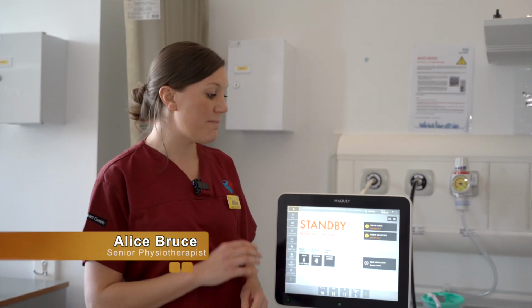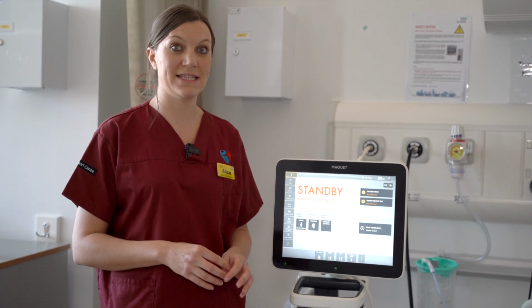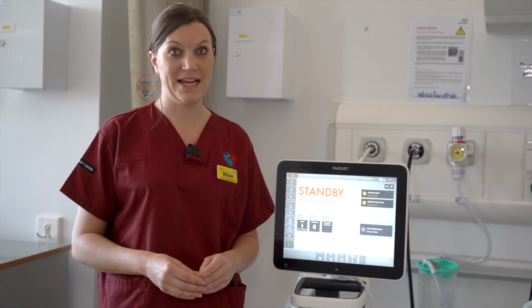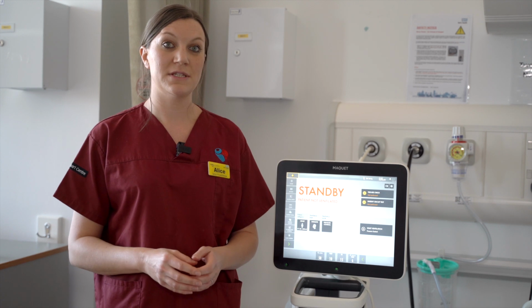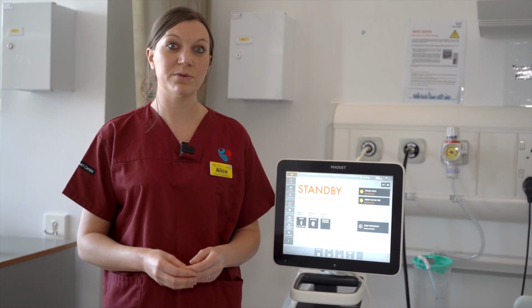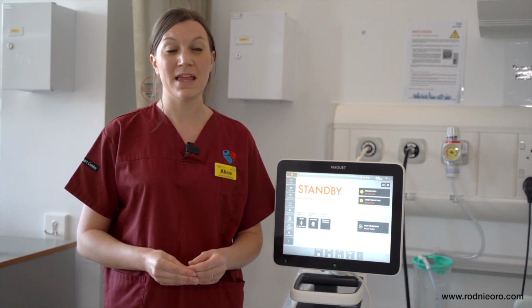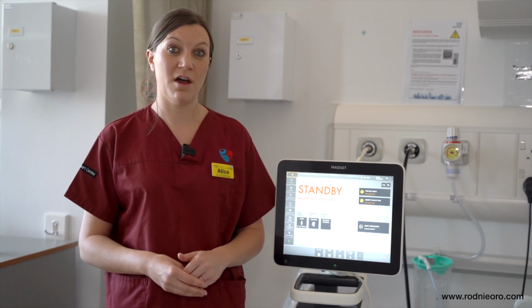So in summary, we have now covered the respiratory assessment for an intubated patient, an introduction to the ventilator circuit and the suction unit, the basic understanding and setup of the ventilator, and also the modes of ventilation. We really want to emphasise the importance of the lung protective strategy, but also to make sure that you're calling for help when needed, and the ICU team will be able to come and assist you.